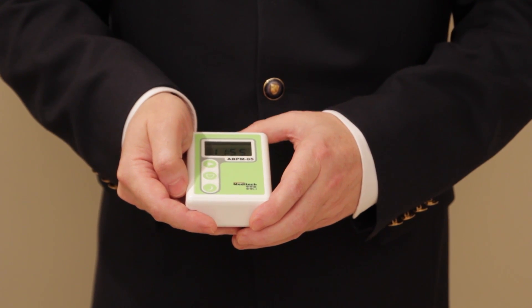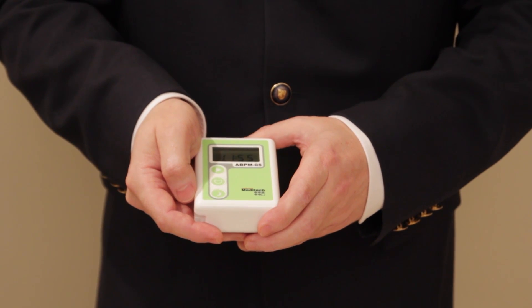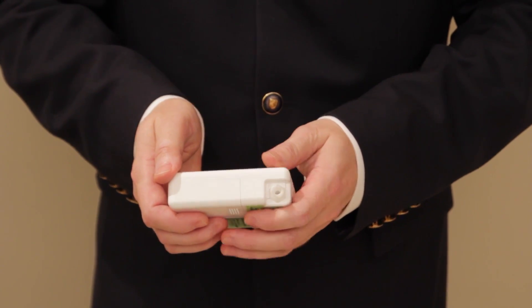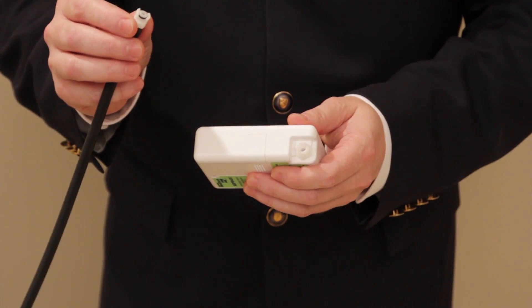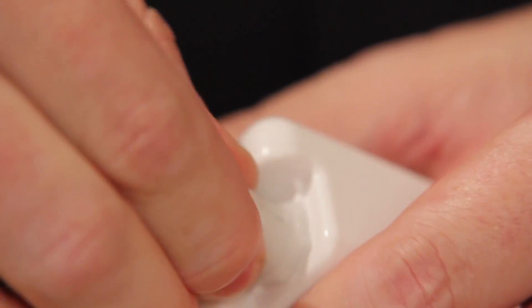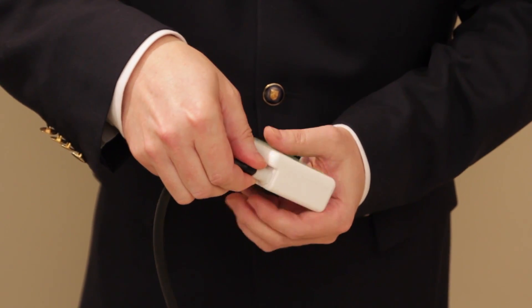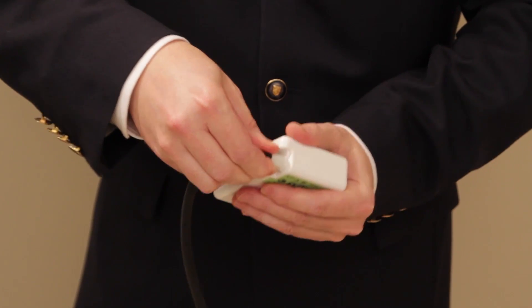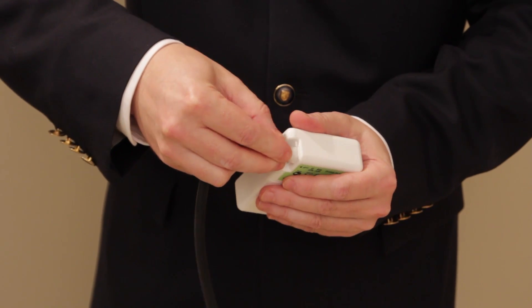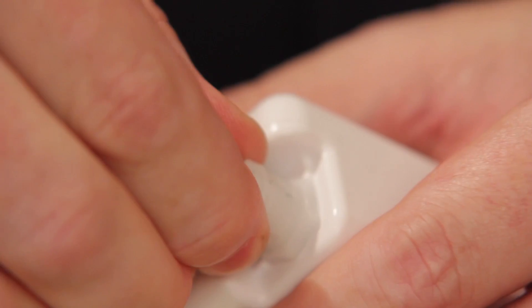This is just the theoretical operation of the device. If you really want to operate it, you have to have a cuff properly applied to the upper arm of the patient and connected to the device. To connect the cuff, take the end of the tubing, plug it into the device and turn clockwise until a small click is audible. To disconnect the cuff, turn counter-clockwise until a small click is audible and then pull. To summarize: push, turn clockwise to connect; turn counter-clockwise then pull to disconnect.